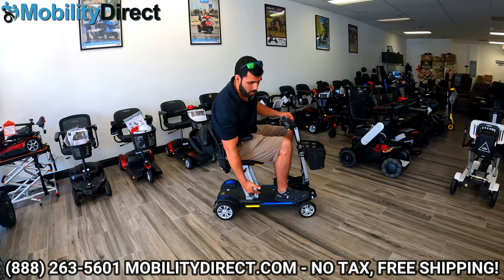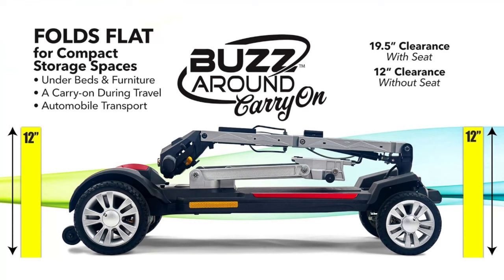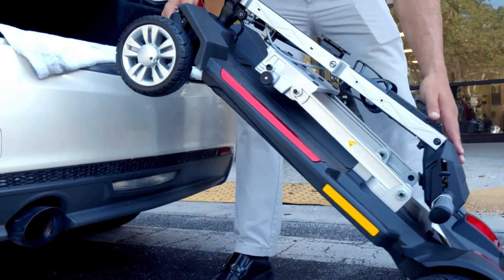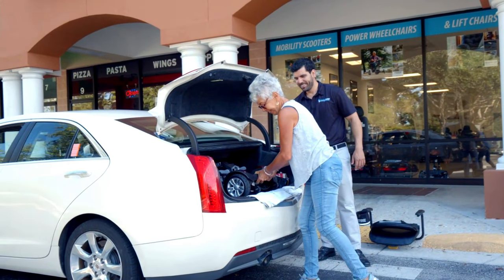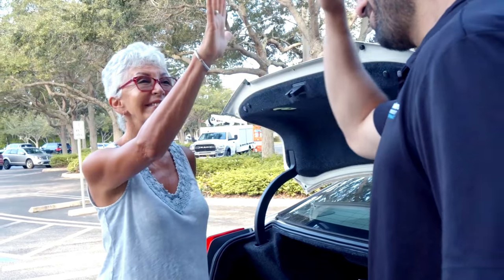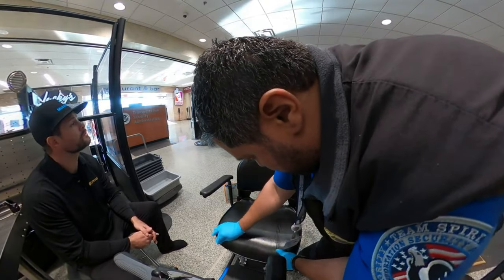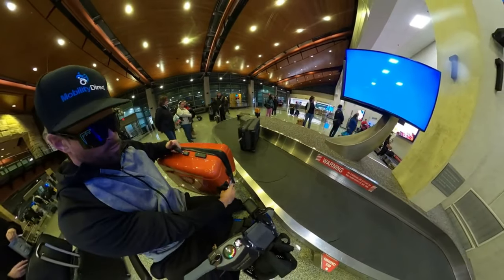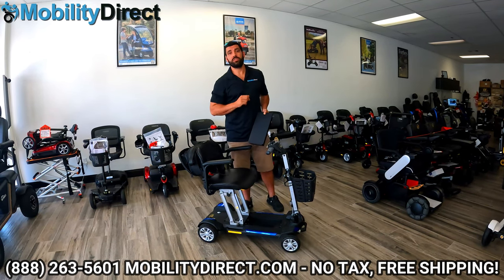There's no other mobility scooter that's going to have a four-inch ground clearance that can fold. The height of the unit when folded is only 12 inches, and simply putting the front two wheels on the bumper of your car with the trunk open, being able to grab those handles and roll it in is something no other scooter really offers. It is a patented feature. We recommend this scooter to anybody that wants something easy and convenient to transport. Check out our YouTube video where we go on a cross-country tour on an airplane with this exact scooter — from TSA checkpoints to boarding the plane, the whole nine yards.